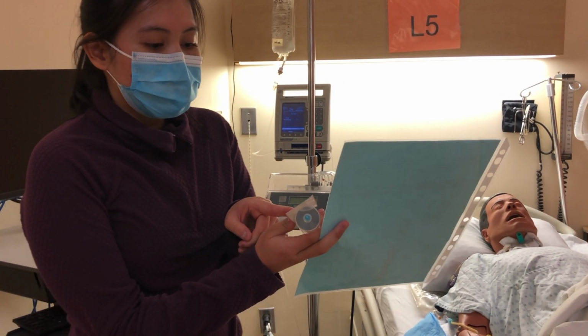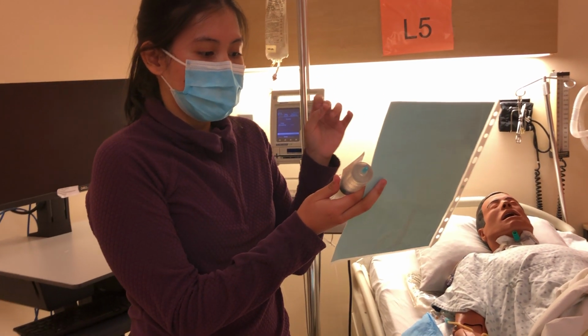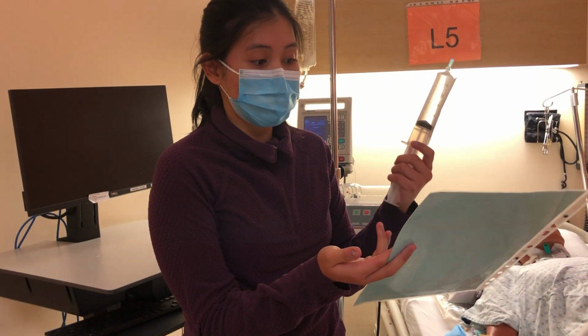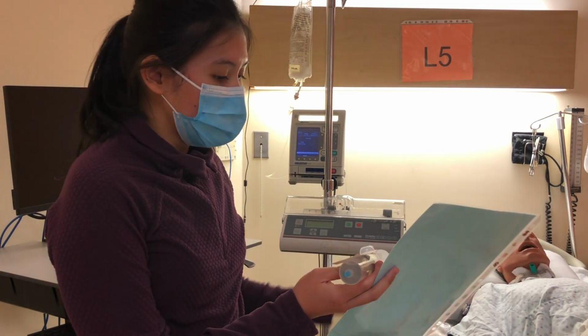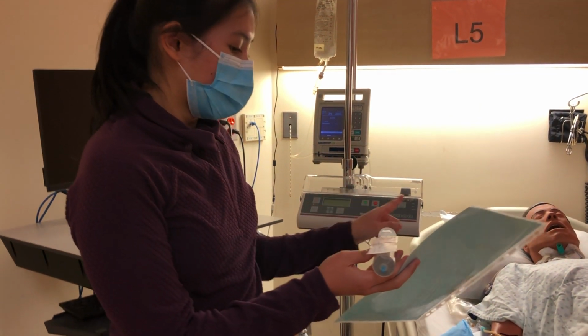I know it's 10 micrograms, so in order to get that, I needed the 500 micrograms in the syringe, which is 10 ml, and then diluted in the 40 ml of normal saline to get the final concentration of 10 micrograms per ml. And the route is via PCA pump. The date and time is today, now. So it's been signed. Okay, that's good.